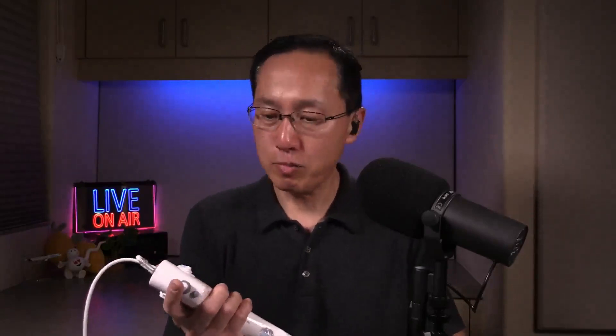Ergonomically, it's pretty good in my hands. Again, seven and a half surgical glove size hands and it fits my hands really, really well. I'm looking forward to using this more and more in my future cases. I would love to hear what you think — what is your current favorite disposable single-use ureteroscope? What have you tried, what you like about your prior scopes, what you like about your current scope, what you don't like about your current scope? Let me know in the comments below.